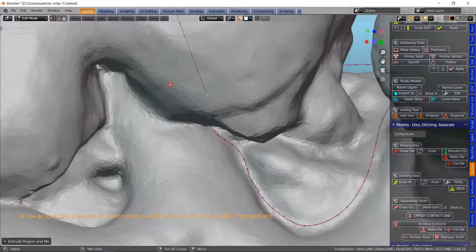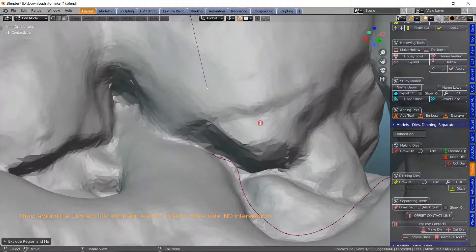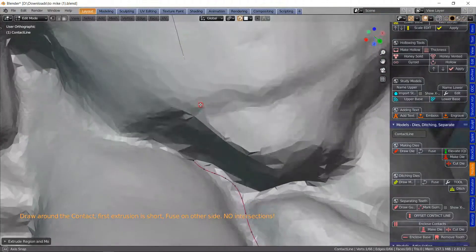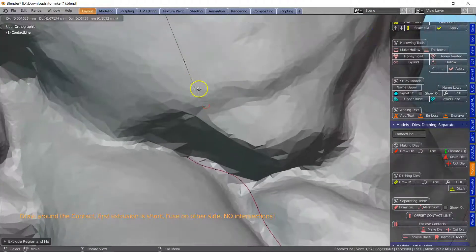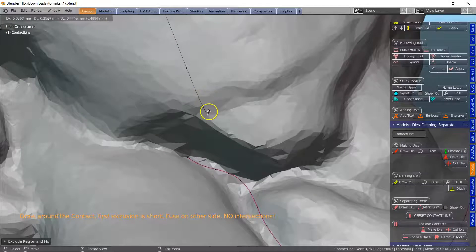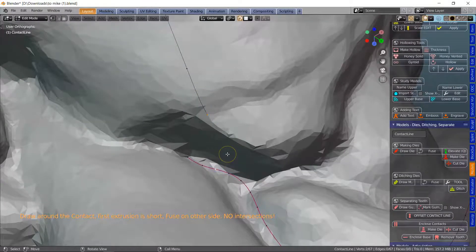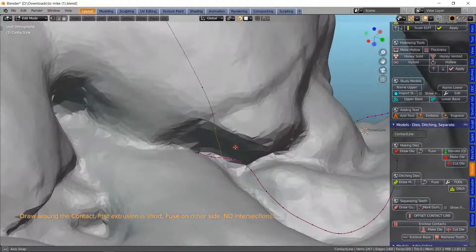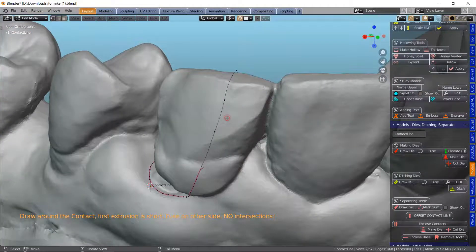So you see this meshy mesh, we could have sculpted that, smoothed it with a sculpting tool actually before we started. So let's just fuse that and then give it a quick inspection, that's all looking nice.